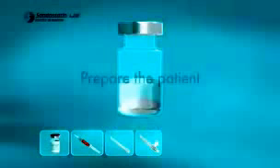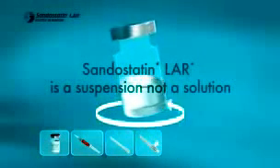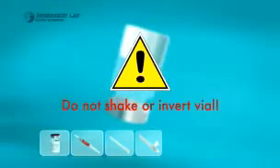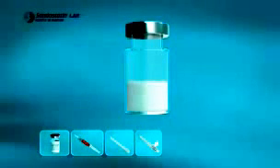At this stage, prepare the patient for injection. Once complete wetting has occurred, the vial should be moderately swirled for a minimum of 30 seconds until a uniform milky suspension is achieved. Do not vigorously shake the vial, as this may cause the suspension to flocculate, making it unusable. Peel off the outer label from the pre-filled syringe with diluent after product reconstitution. As with all parenteral admixtures, the constituted product should be examined for the presence of foreign particulate matter, agglomeration, or discoloration. Any defective units should be discarded.